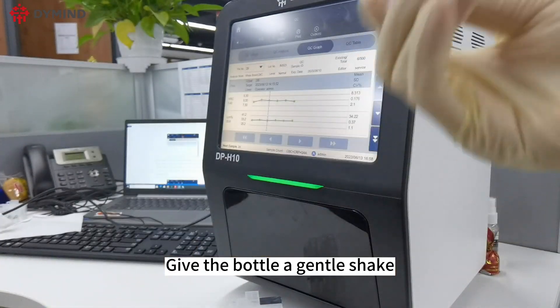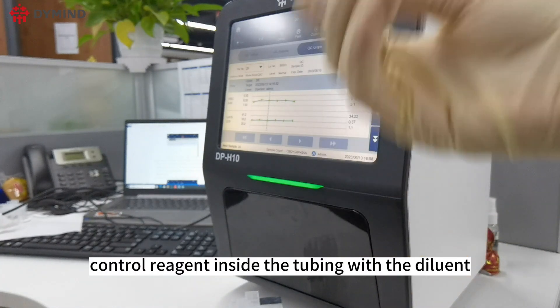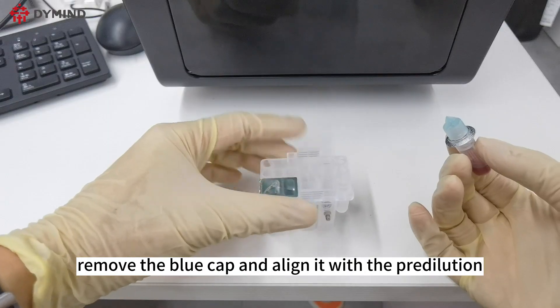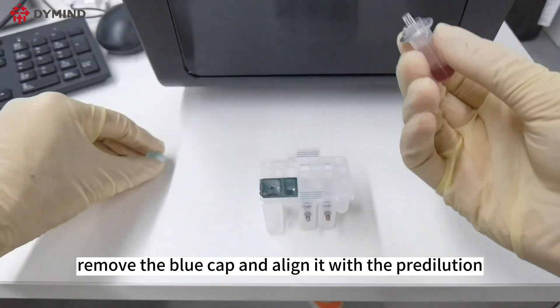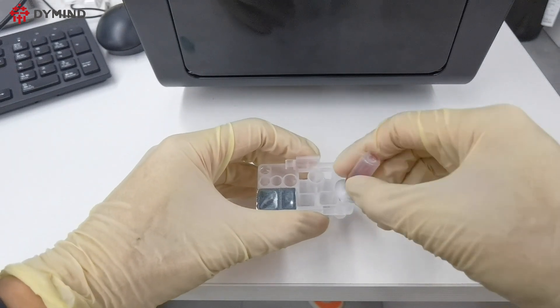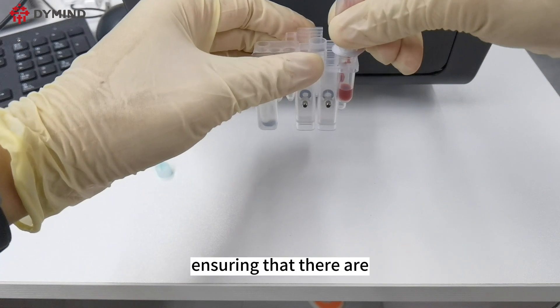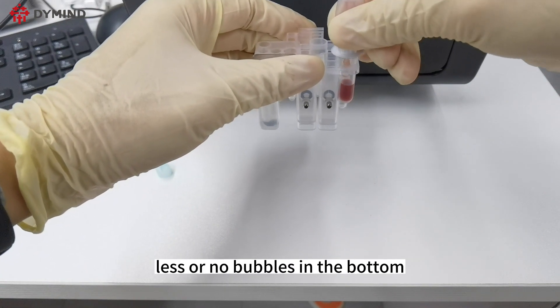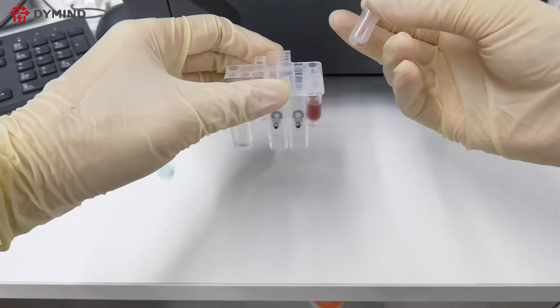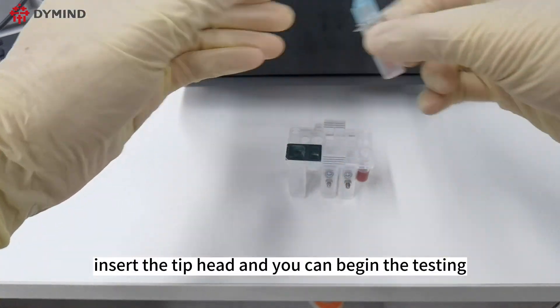Give the bottle a gentle shake to thoroughly mix the quality control reagent inside the tubing with the diluent. Remove the blue cap and align it with the pre-dilution pool on the reagent kit. Squeeze the sample from the bottle with force, ensuring there are few or no bubbles at the bottom. After preparation is complete, insert the tip head and you can begin testing.